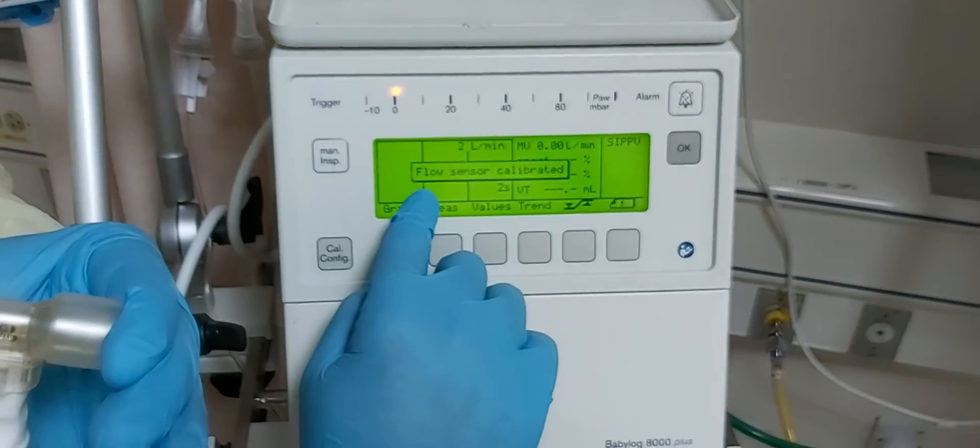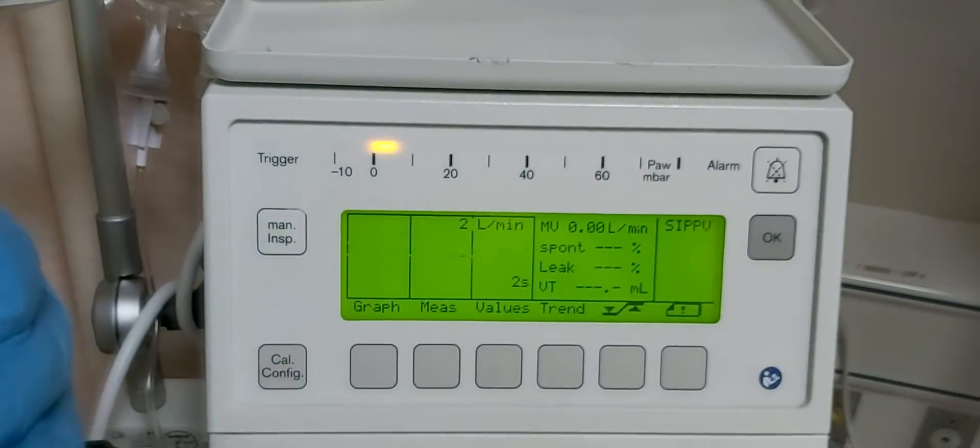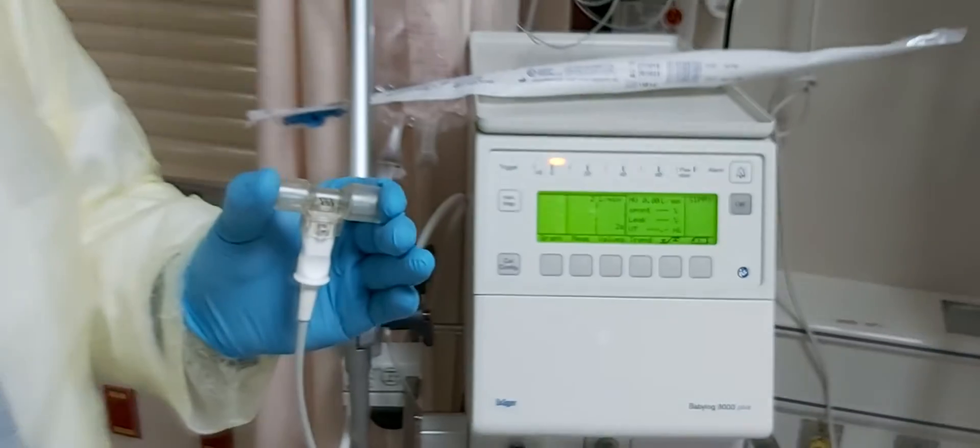It will appear a message: flow sensor is calibrated. That means it's ready to use now. Thank you.